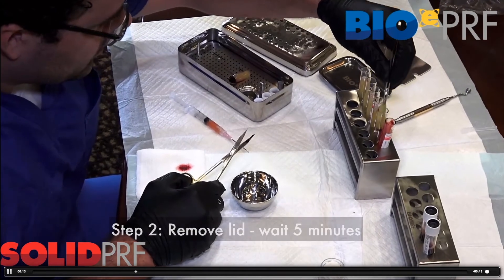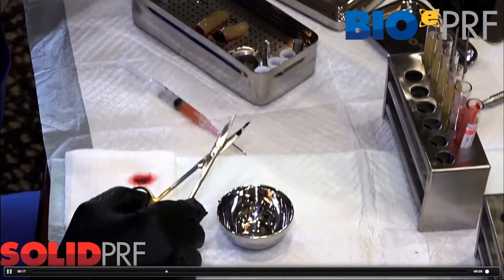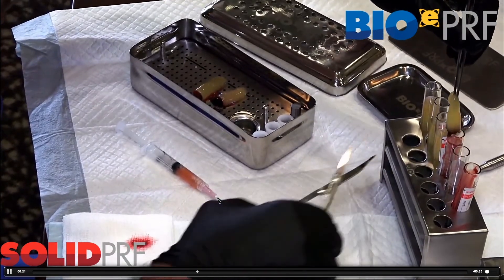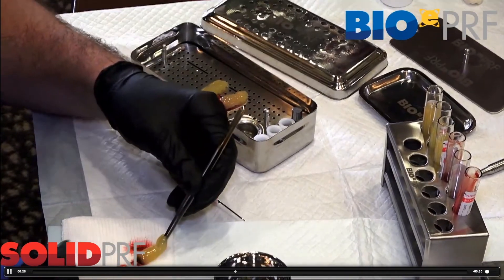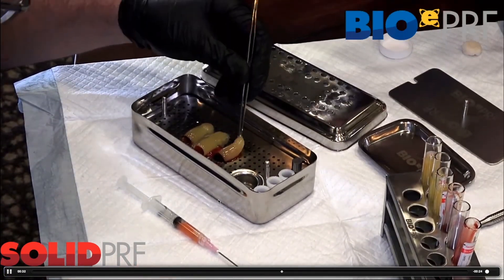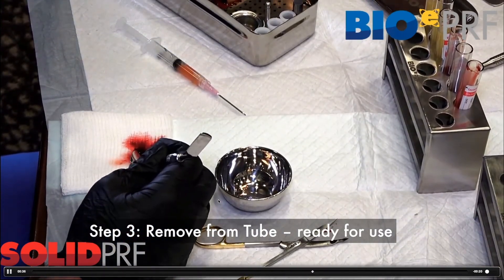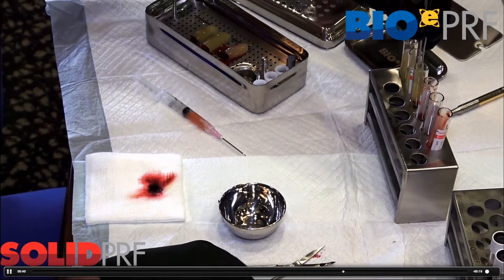Here we've spun with the more hydrophilic tubes discussed previously, so you can see the membranes are a little bit bigger. A couple of key concepts: ideally you do not want to remove too much of the red zone layer. As reviewed in chapter two, that red zone is very rich in cells. If you do need to remove the red zone, you can use one of the instruments in the kit to basically peel it off.